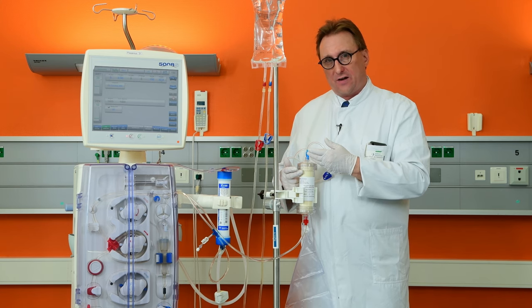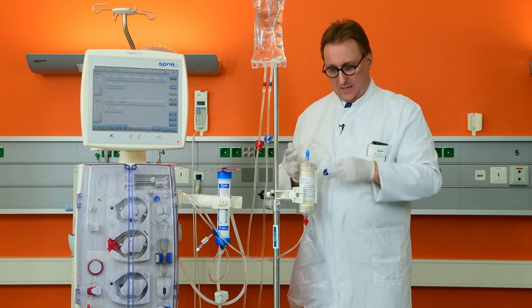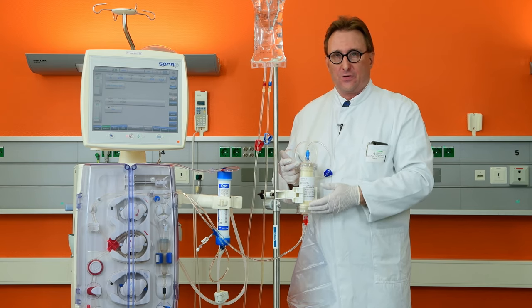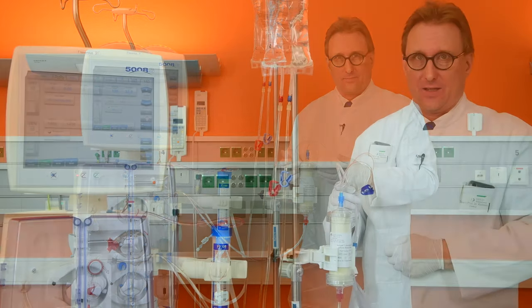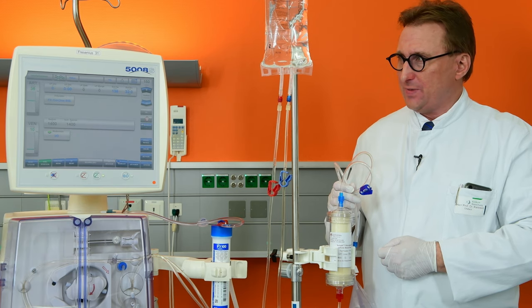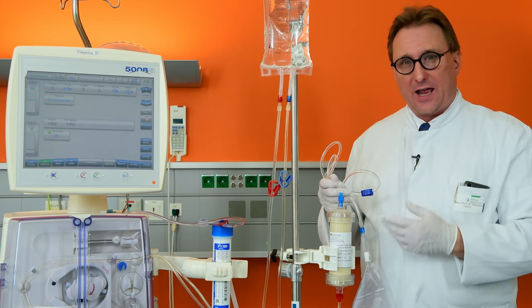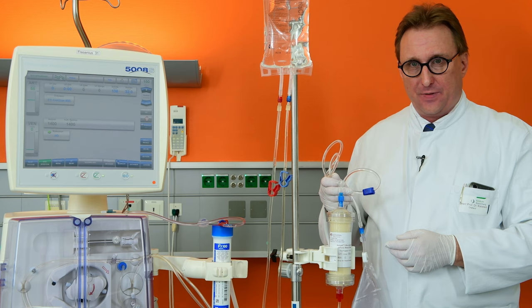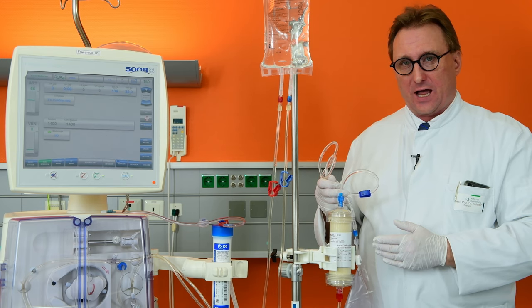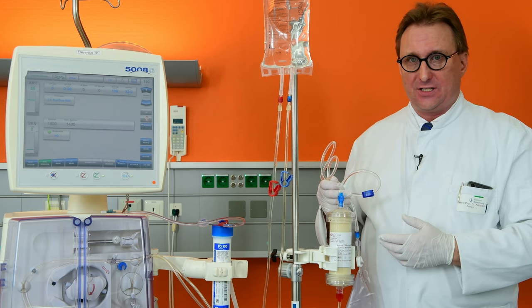The outlet port of the Seraph is not yet connected to the other part of the dialysis system, but to a tubing leading to a discard bag, because the Seraph first needs rinsing. When filling and de-airing the Seraph, set the blood pump speed to 150 milliliters per minute. If stubborn bubbles form, stop the filling process, turn the device 180 degrees, and use a syringe to remove the last stubborn bubbles.